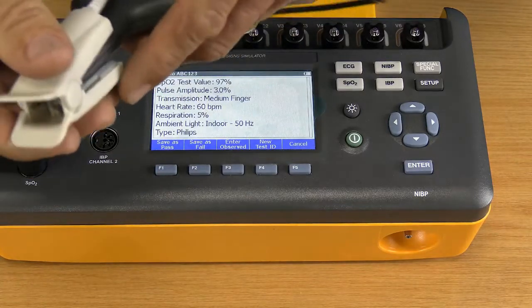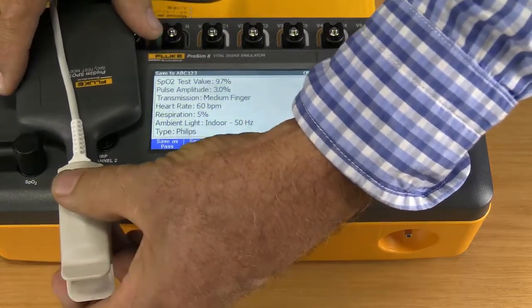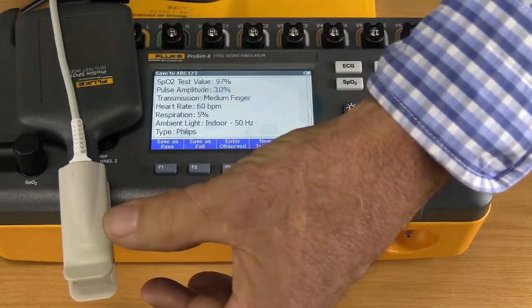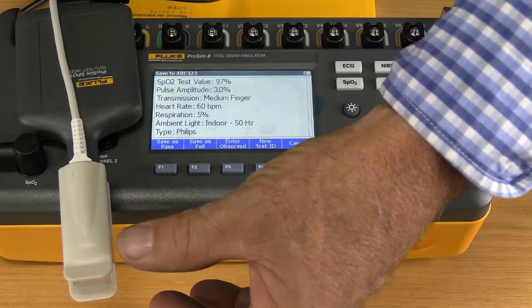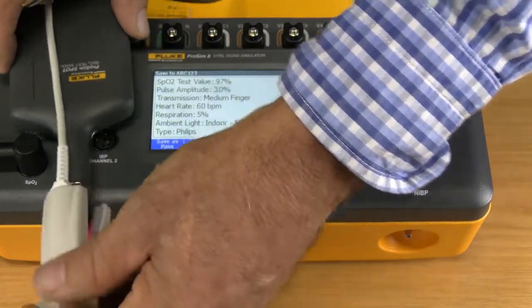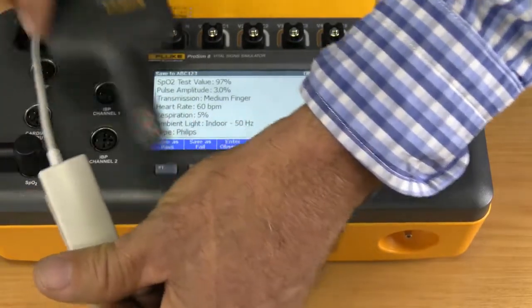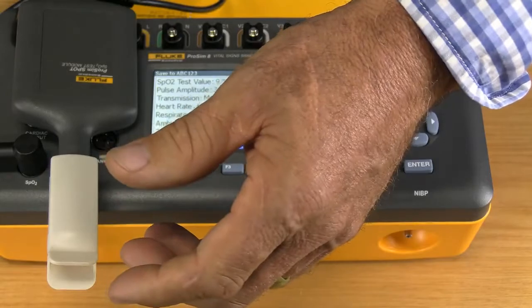and we add our probe, and normally it takes a little while of playing around to get the probe sitting at exactly the right spot. See, we're still searching there. Those rubber probes work a lot easier than these clip-on ones. Let's turn it around. Let's just get our positioning right. Okay, there we go. See, now we've got that right. So what we're doing now is simulating the SPO2 signal.